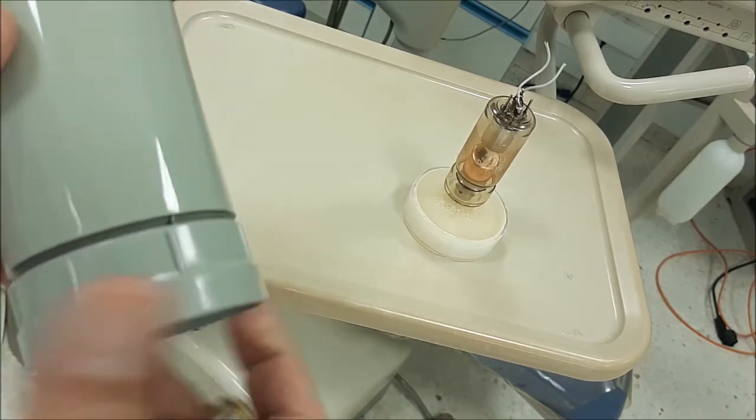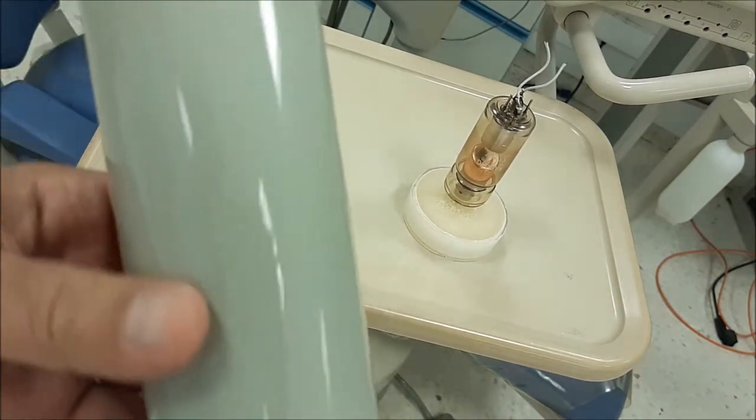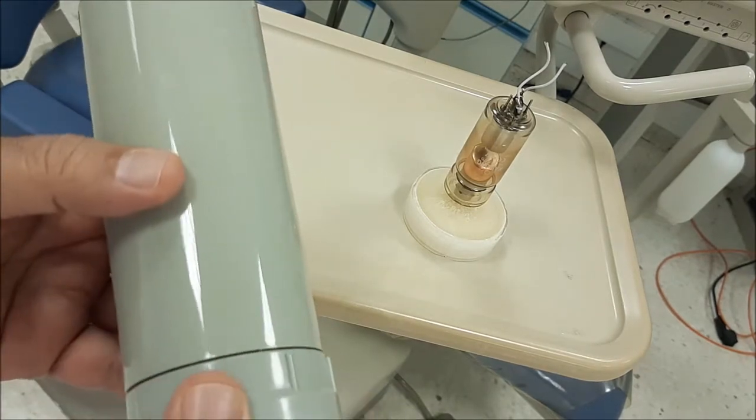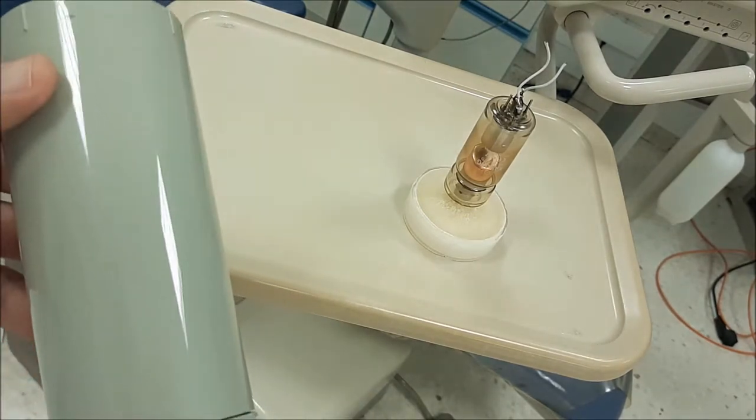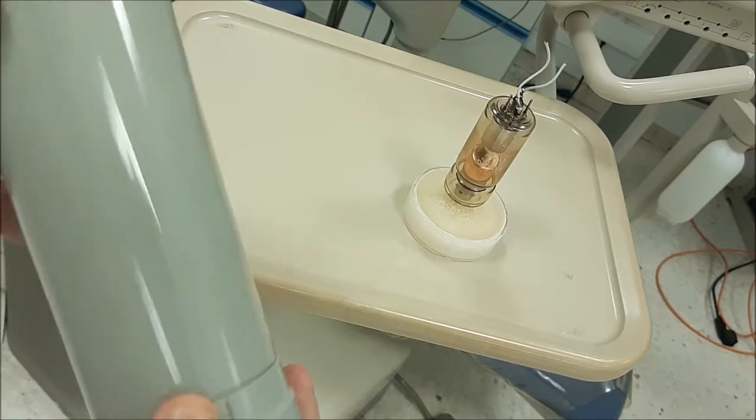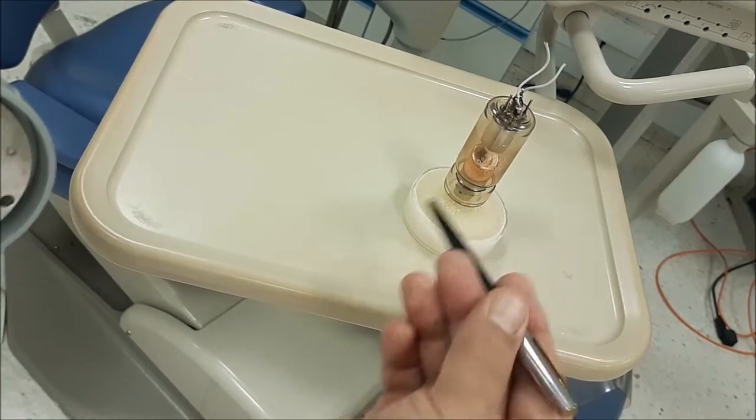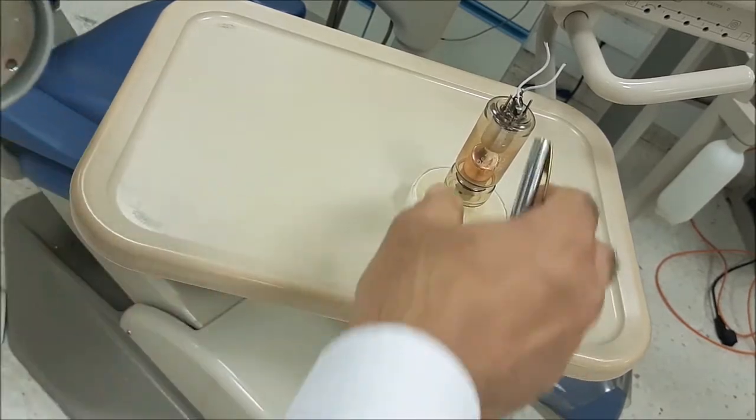The next component that is also considered as a basic part of the x-ray head is the x-ray tube, which generates the x-ray.